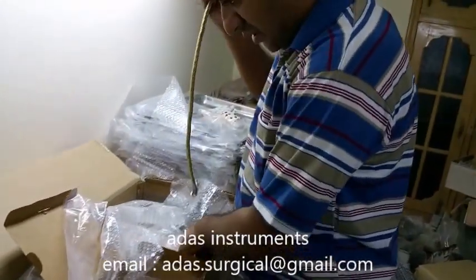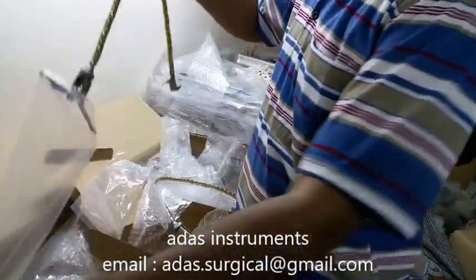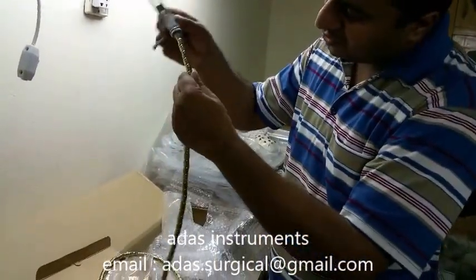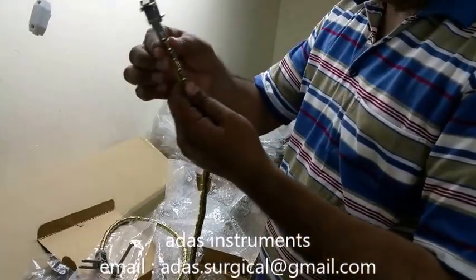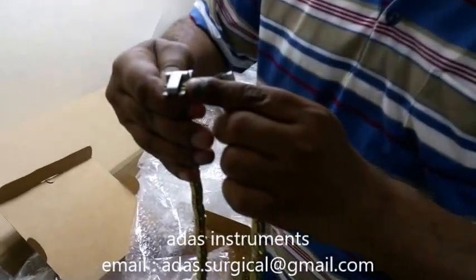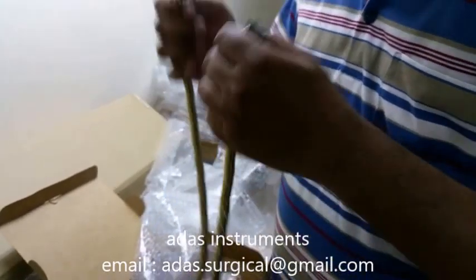Here is the other arm. Actually, it is based on two flexible arms, both the same. And they have 39 pieces, titanium plated. These are. And there is a different type of spatula holding — one has teeth and the other is plain. These both have different functions.